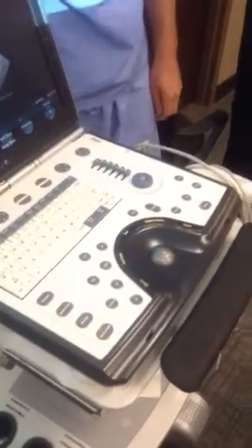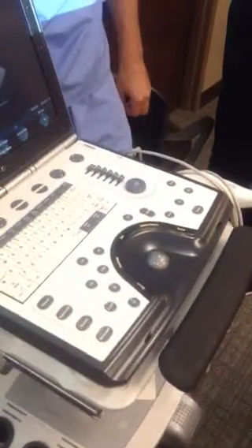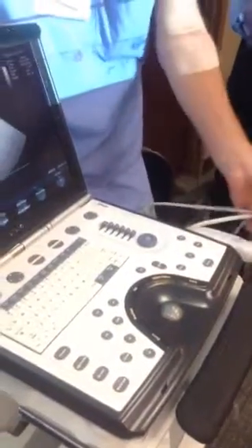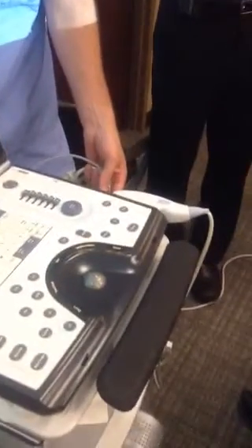You mind if I add something really dumb? If you ever have it on and your probe isn't sensing or picking up the frequencies, unplug it there on the side, right over there, and just plug it back in. Right, and there's a lift mechanism here, it locks and unlocks. So the machine is on, but you're not getting anything. Just unplug that and put it back in there. I'm telling you all this by experience, not because I know. It's because I've sat there. Yeah, it can get loose.